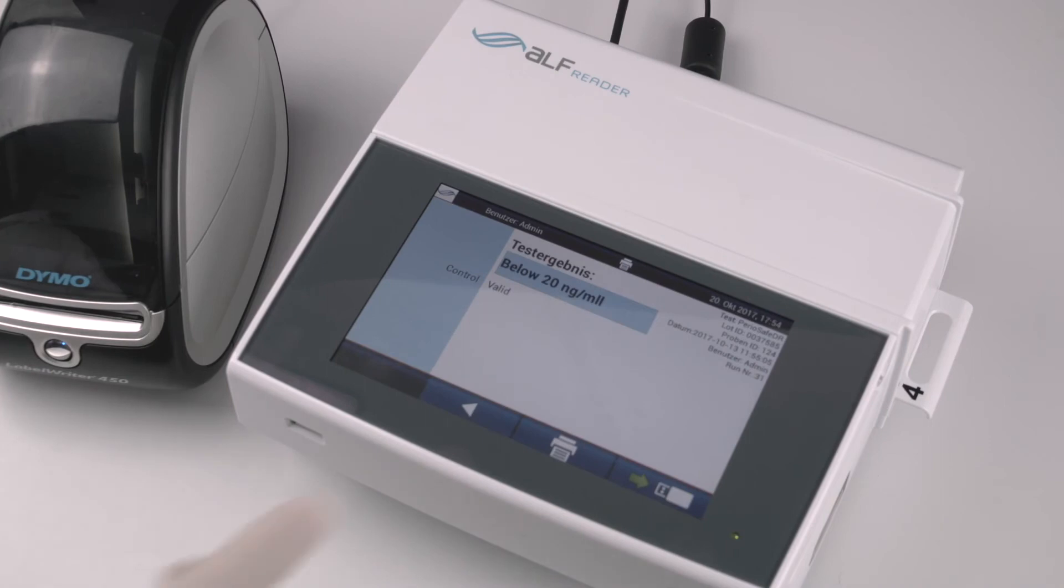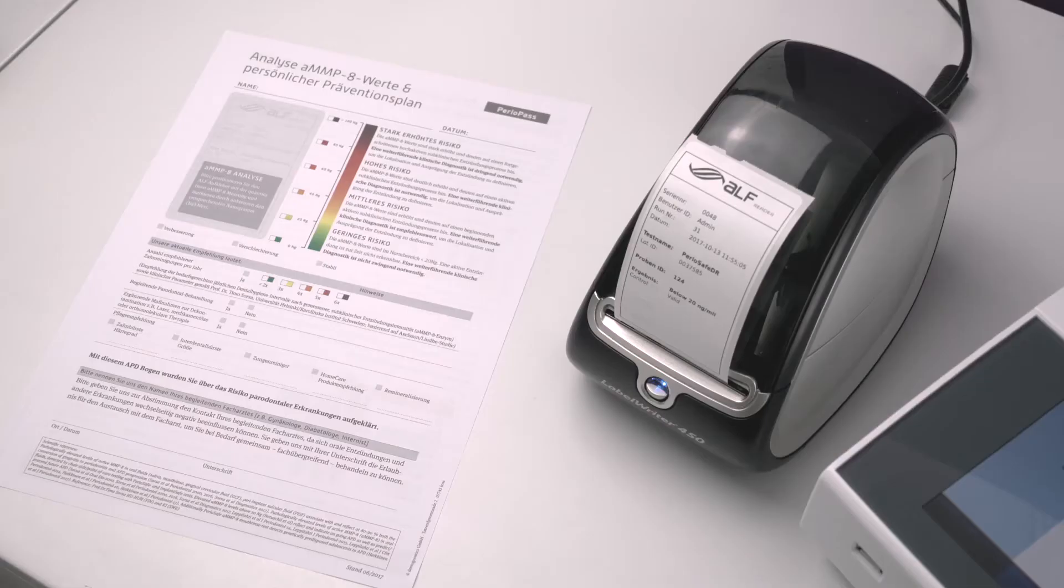You may print it out by pushing the printer button on the bottom of the screen. The printout is a sticker which should then be placed in the matching grey area on the patient's personalized prevention plan.